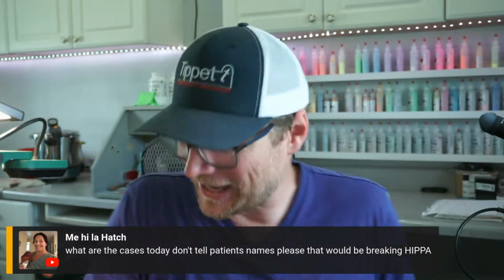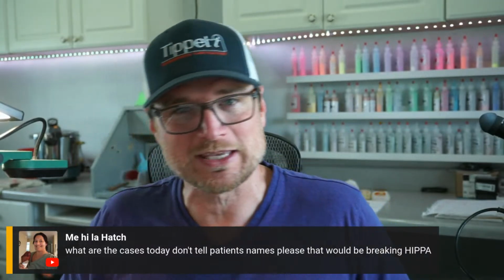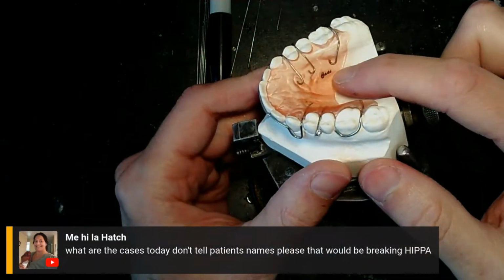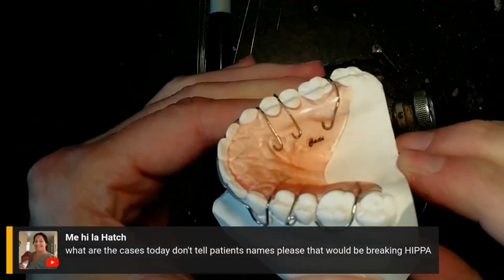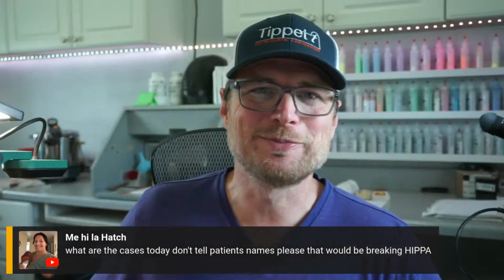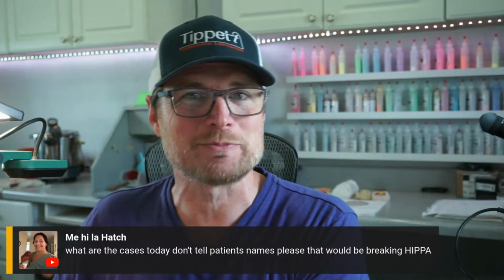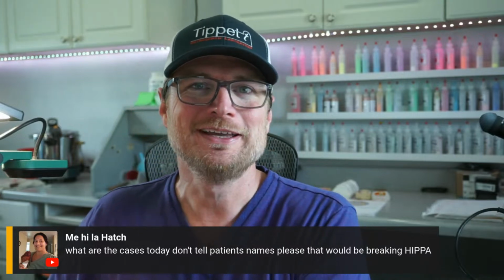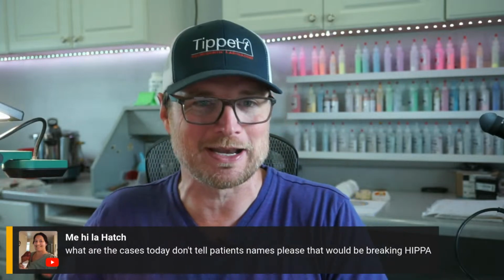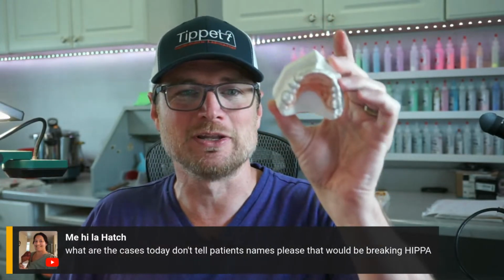Yes, I try my hardest not to break patient names, not to break HIPAA. But if you look here, look at that name. I am breaking HIPAA right now. Oh wait, that's my name. So yeah, we had to put our names on these when we did them in lab school so the examiner, the teacher, could tell them apart. So that actually has my name. This actually isn't a patient in real life.